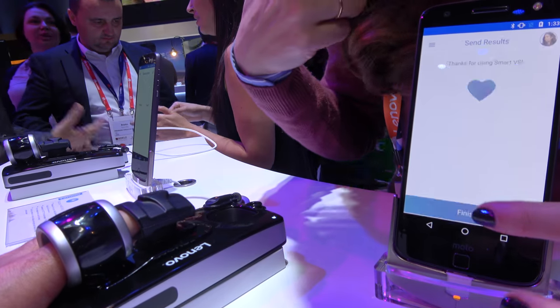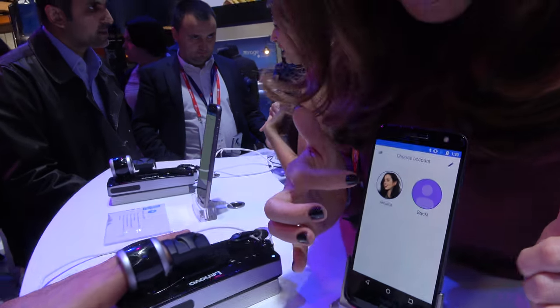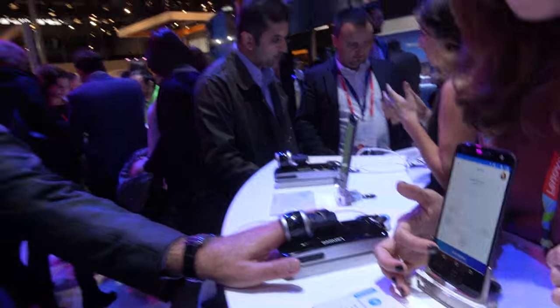For demo purposes, Fabio is Jessica, and we're going to hit start. Does it feel pressure on the finger right now? Yeah. Does it feel funny? It's perfect.